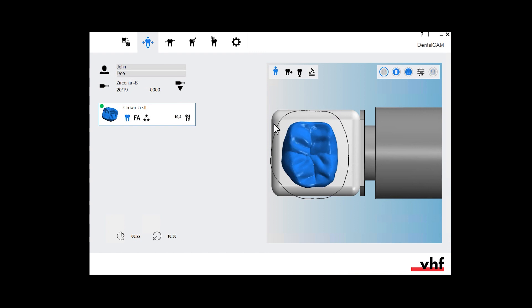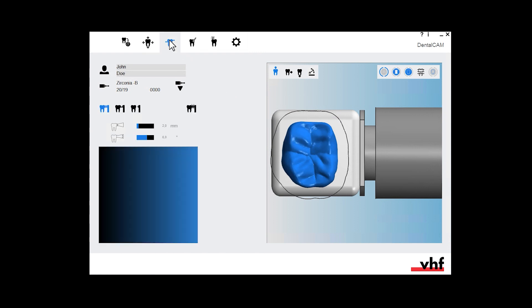Switch to the view for setting bars. You can choose between three types of bars: intact bars, bars that will be reduced during finishing, or bars that will be removed completely by the end of machining. Reduced and removed bars will allow you to separate objects more easily from the block at the cost of stability.